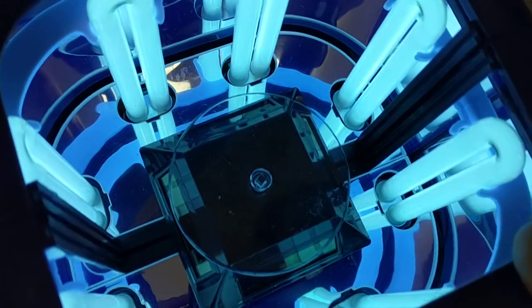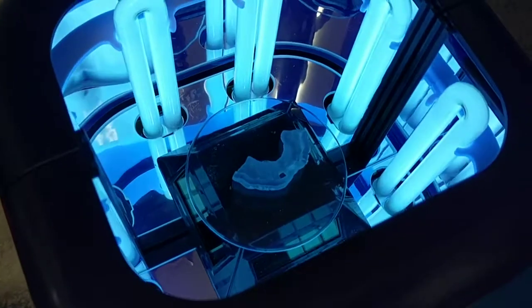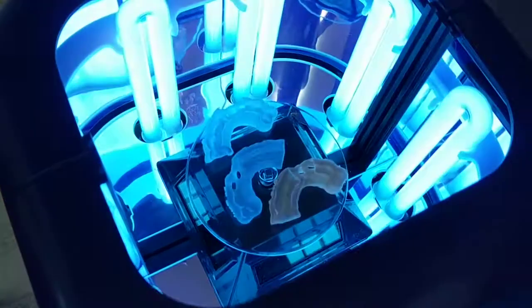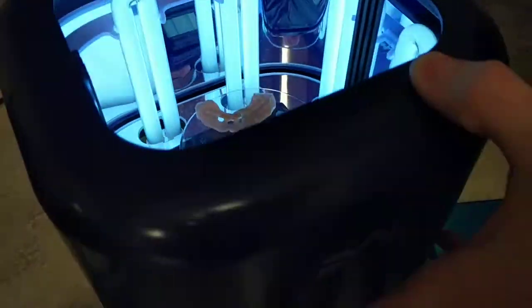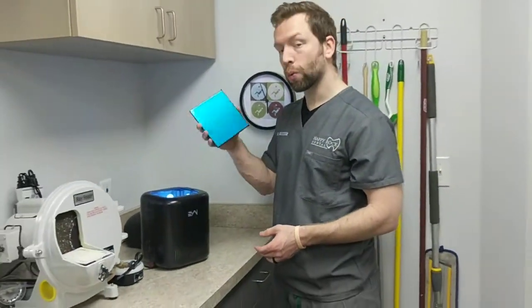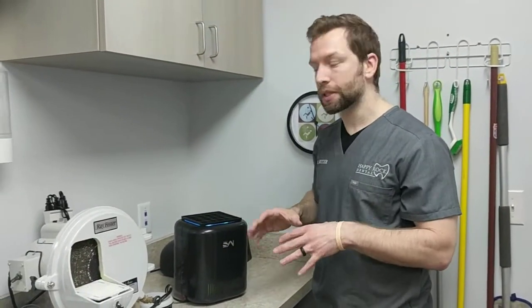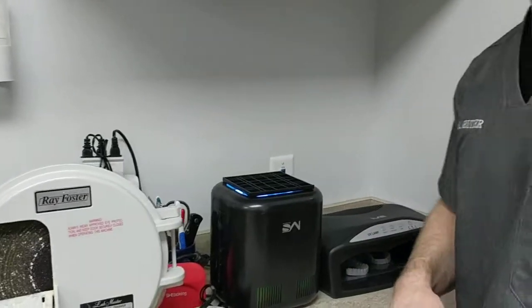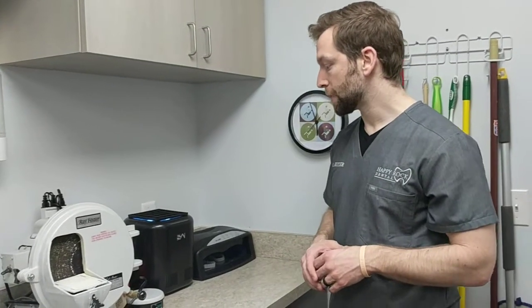You can see it start to turn — it's a solar-powered turntable. I can place surgical guides on top and easily fit four, five, or six at a time and let them all cure. When I leave them in the lab I take one of the little slide-out trays and set it on top, getting more light reflection into the prints. With the 30-minute timer set, it won't keep going beyond that. I like surgical guides and occlusal guards to cure for at least 30 minutes to an hour if possible.